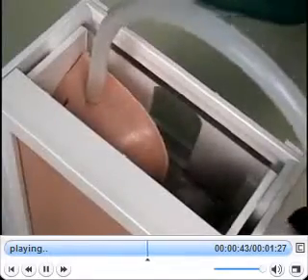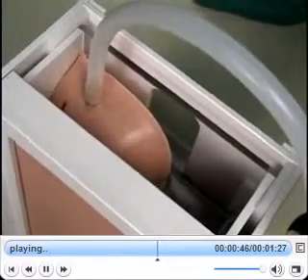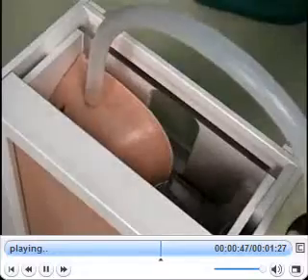The model also features an open top, which enables the instructor to provide feedback on procedural concepts by allowing students to visualize the catheter depth and placement within the pleural cavity.